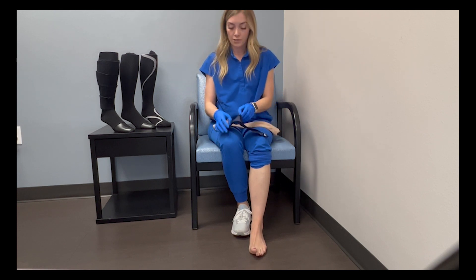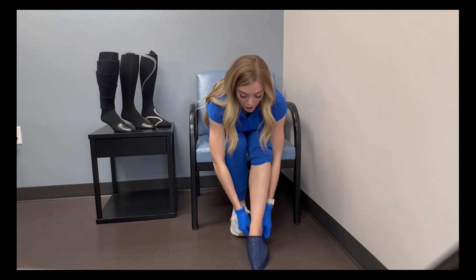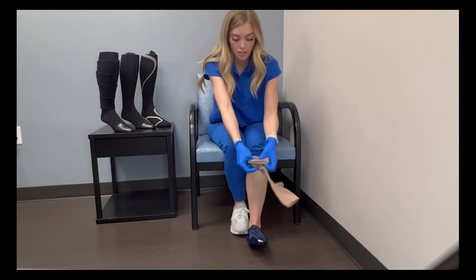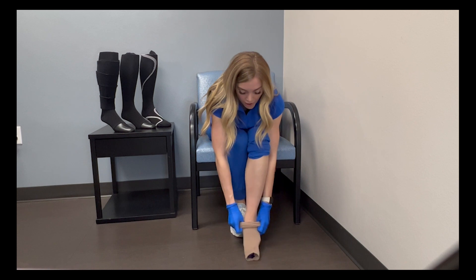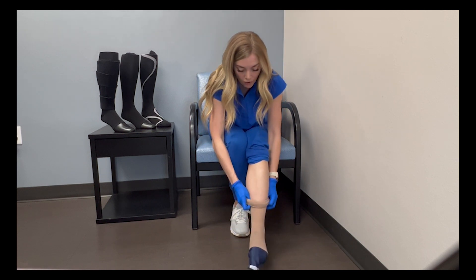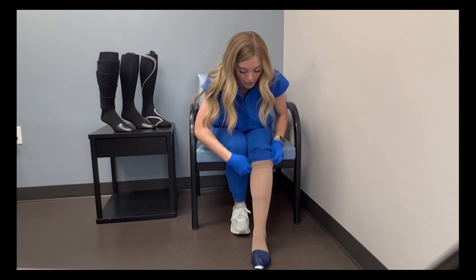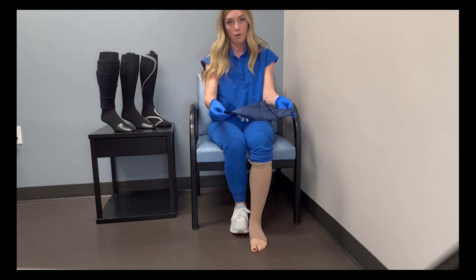So I'm going to show you how to use this little silk sock here. You're going to take it and put it over your foot like you would if you were putting on a sock. I'm then going to take my compression sock, roll it up a little bit like so, slip my foot into it and pull it up as far as I would like. Once I've got it on and I feel like it's where it needs to be, I can then take this silk sock out.